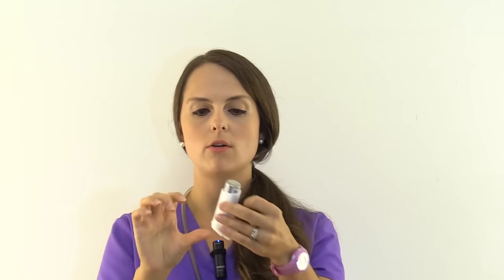To prime it, take the cap off and check inside the inhaler to make sure there's nothing in there — sometimes patients keep these in their purse and lint can get in. Make sure it's clean, then give it a good shake. Hold it between your thumb and fingers and shake for about eight to ten seconds, then give it four sprays so it's nicely primed.